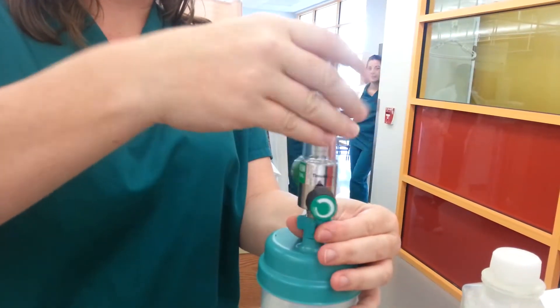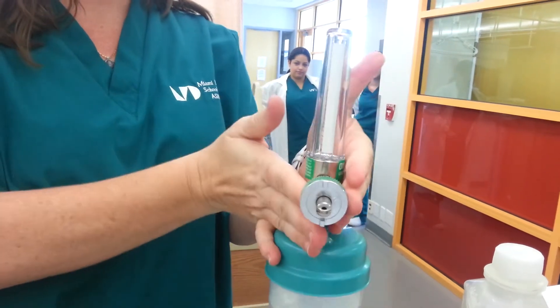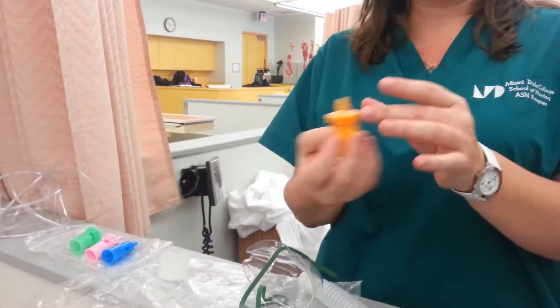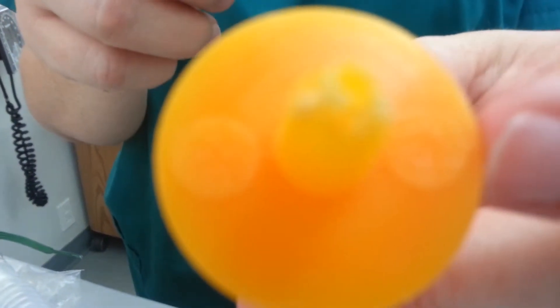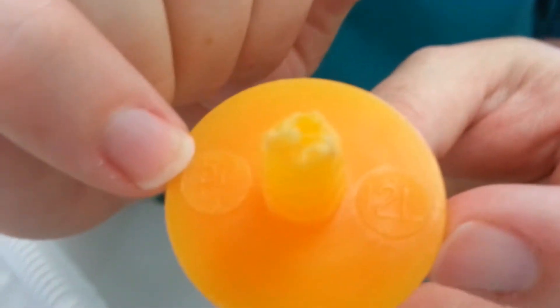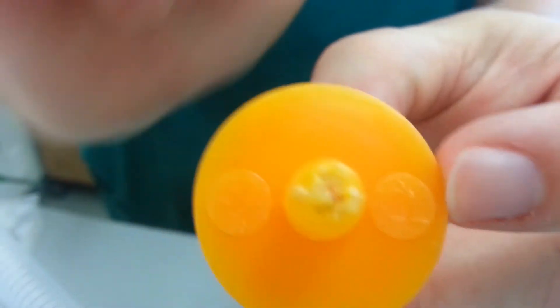This attaches to here — this is the part that will be going into the wall. We will start with the Venturi mask. The colorful things you have to pay attention to on here — it will have the number of liters per minute. You've got 50 percent and 12 liters.